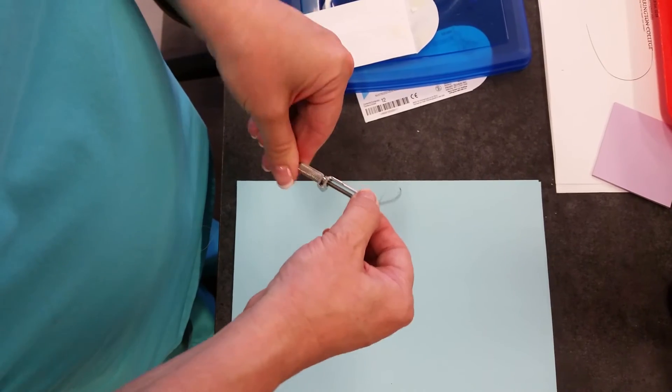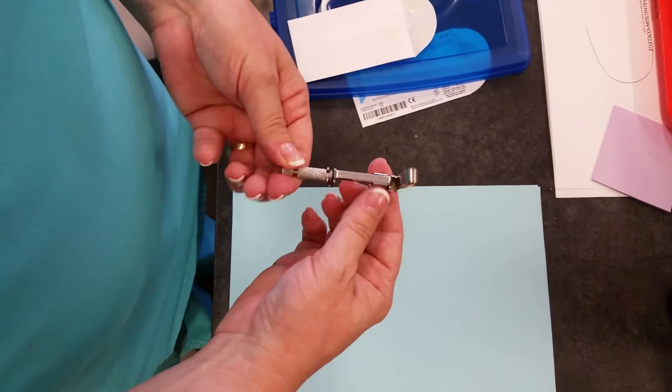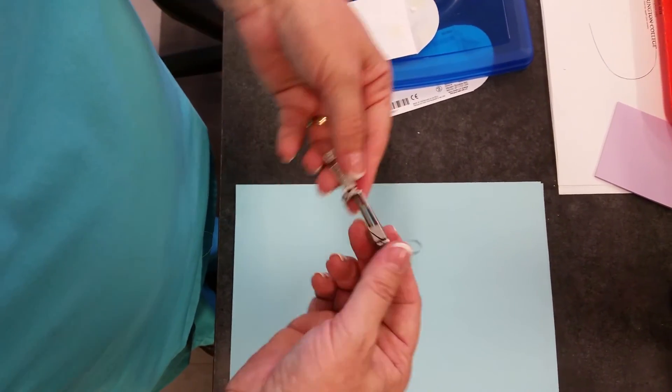So tighten it up and then it would go on to number 30 or like number 14. Simple.